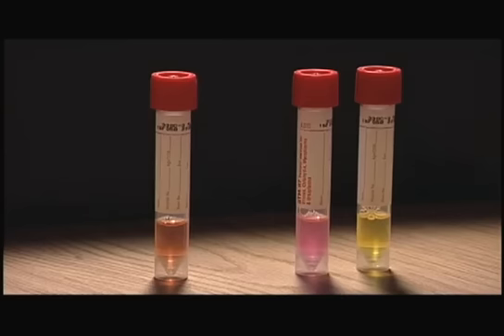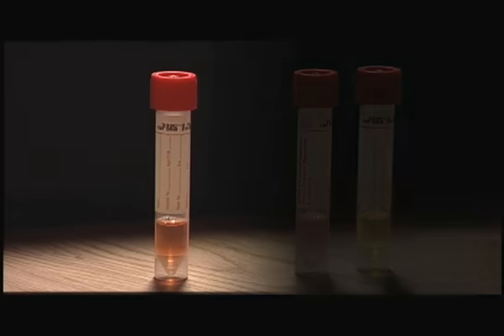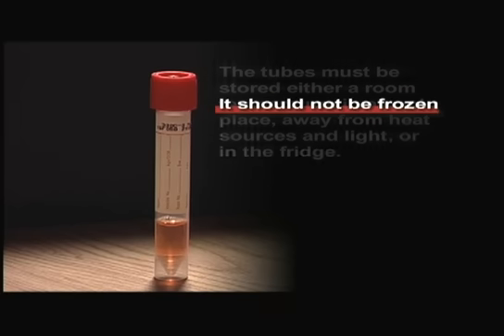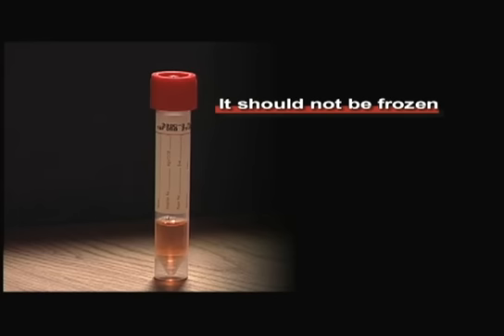The collection tube has an expiry date which is located in black type on the label just below the cap. Do not use it if it's past this date, has become cloudy, has turned color, or has obviously leaked. You will note that the tubes are not individually packaged, so that users will have to request the numbers that they need without wasting it. This medium must be stored either at room temperature in a cool place, away from heat sources and light, or in a fridge. It should not be frozen.